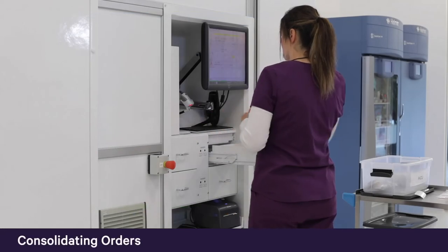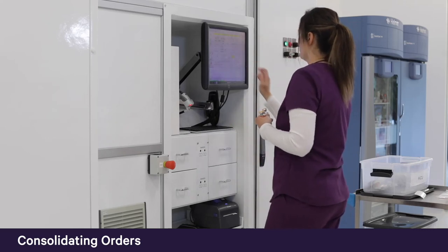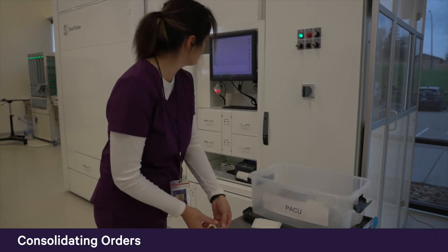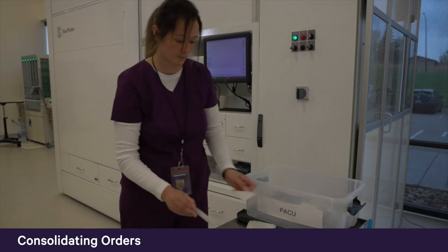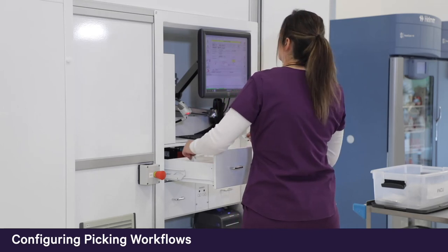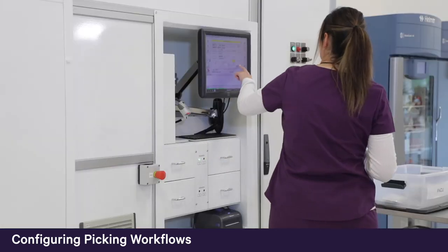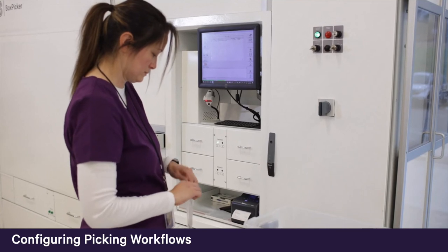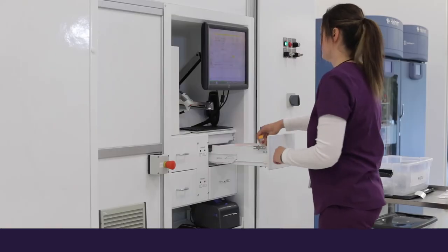To optimize staff efficiency, BoxPicker can be configured to delay stockout or critical low messages received within a certain time frame before a routine cabinet replenishment. By combining these dispenses, technicians experience fewer interruptions and maximize efficiency. BoxPicker's intuitive software enables users to pick all orders for a specific medication at the same time, improving cabinet replenishment workflow by minimizing repetitive steps. For organizations that prefer the added safety of 100% scanning, BoxPicker also allows scanning every each.